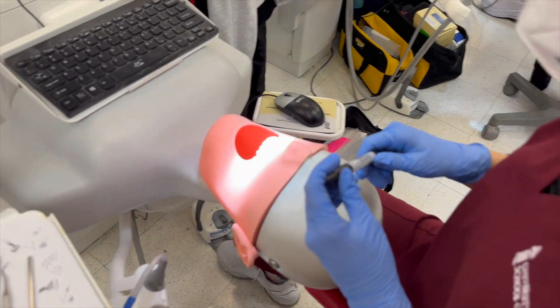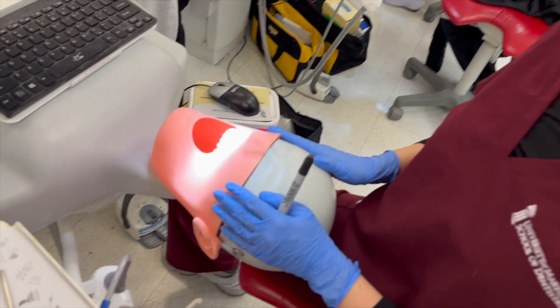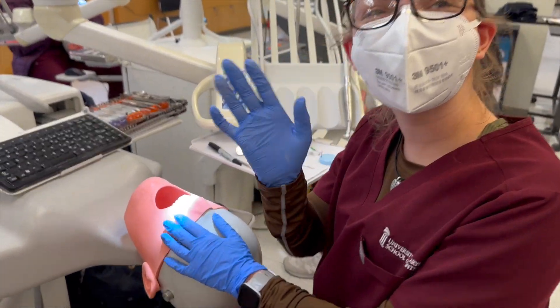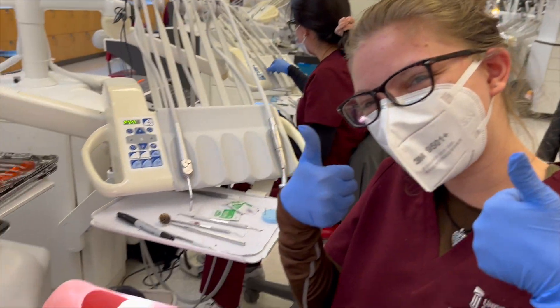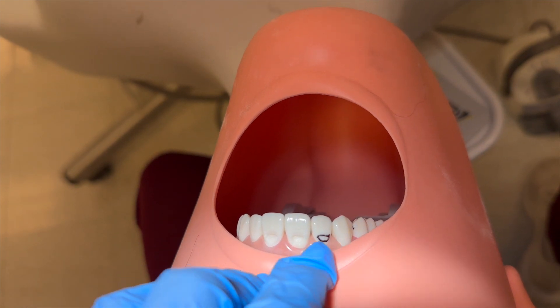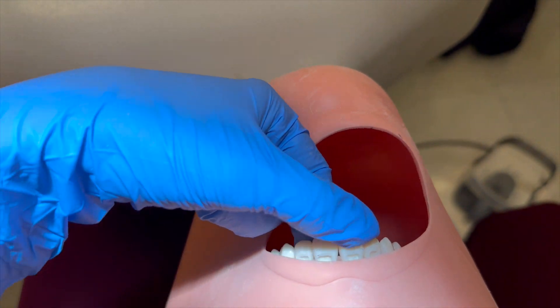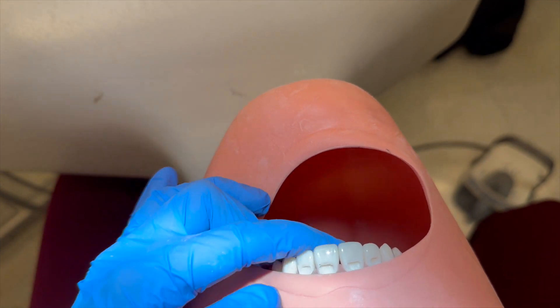Let's visit my friend Brie — she's almost done with all the anterior teeth, working a lot faster than me. This is my friend Mael, who's done three already. I just made my outline for number seven and I'm going to drill that really quick, finish four Class 5s. On Wednesday we're going to fill all of these teeth — today was the drilling, and Wednesday will be the filling.